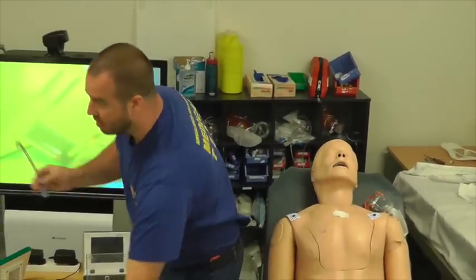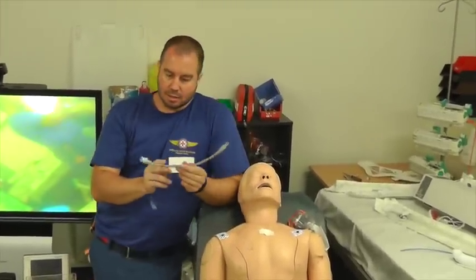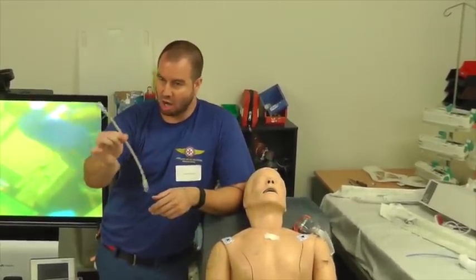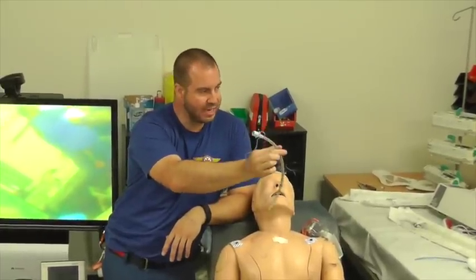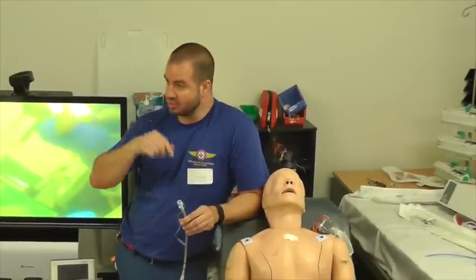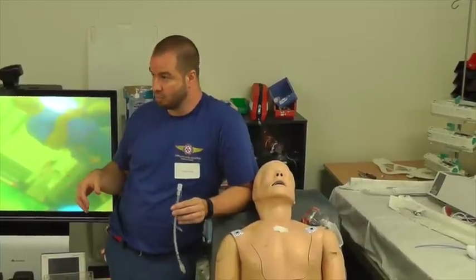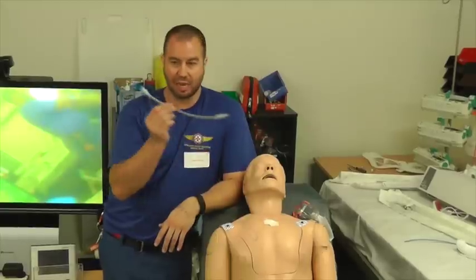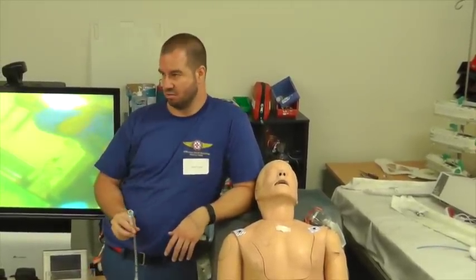The caveats with reinforced tubes are really, really important to highlight. There are at least 3 cases I've heard of where these have been used orally. The patient has bitten down on that. They've compressed the reinforced ring inside it, and they've been unable to be exchange cathetered with an exchange catheter, and the patient's had a bad outcome or died. Every ICU in the state will hate you for bringing these to them because they're very hard to suction through.